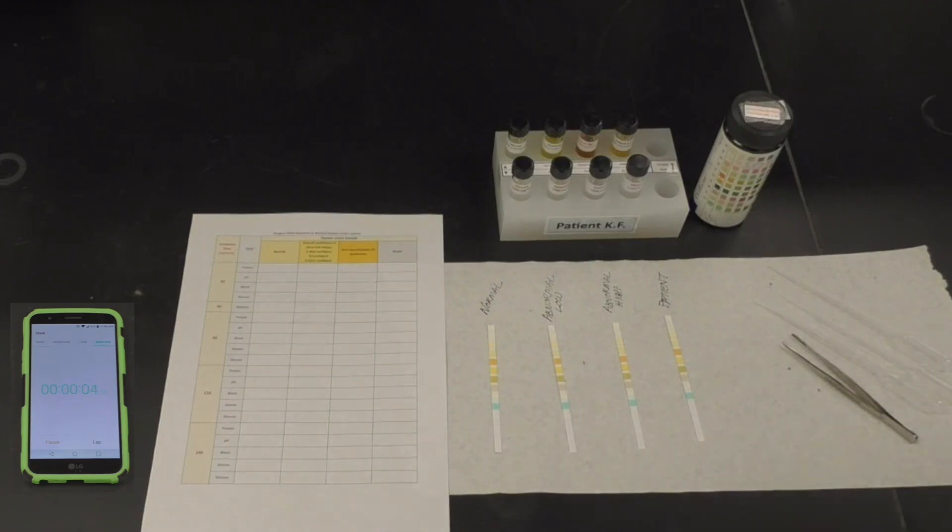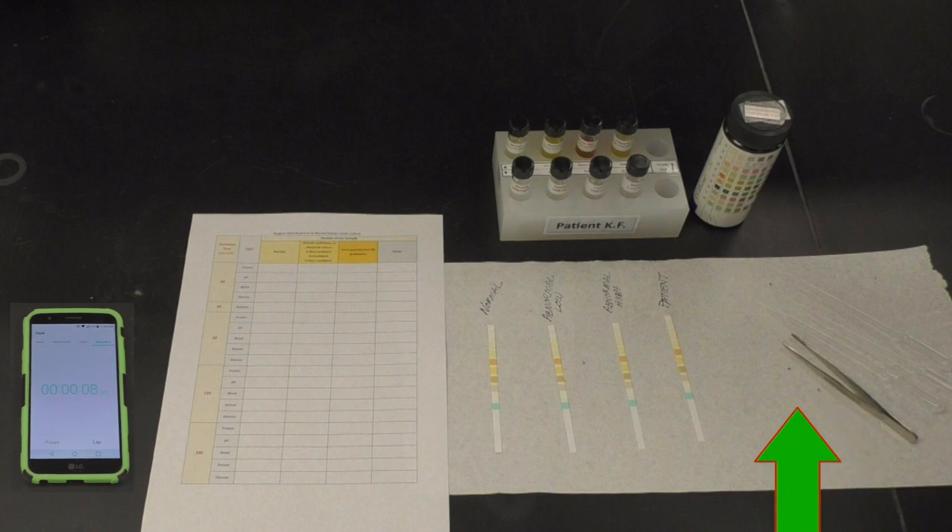You will need your patient block, test strips, transfer pipettes, tweezers, chart to record your results, and a stopwatch.